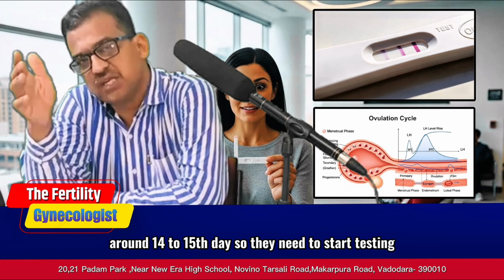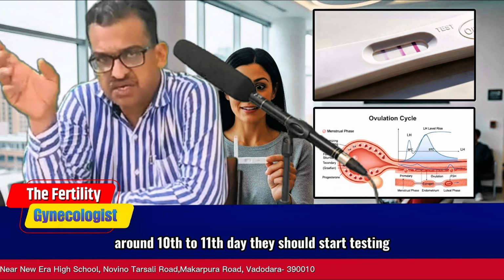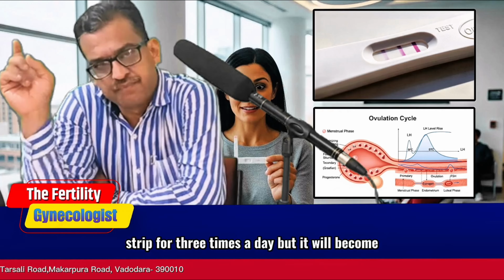So they need to start testing for ovulation at least 48 to 72 hours before that 14th day. So somewhere around the 10th to 11th day, they should start testing. Now ideally, in an ideal world, they say from the 10th to 11th day you test this strip three times a day, but it will become expensive.